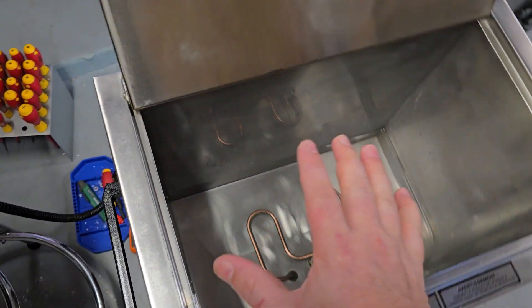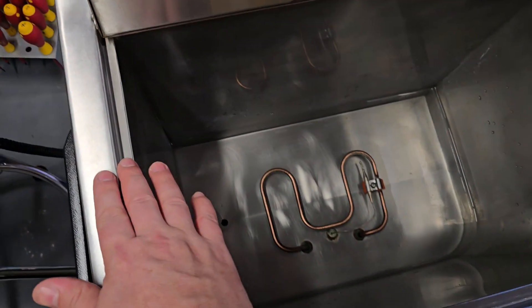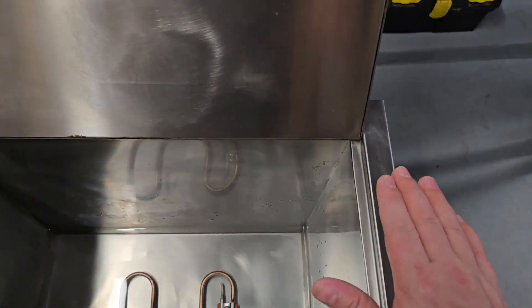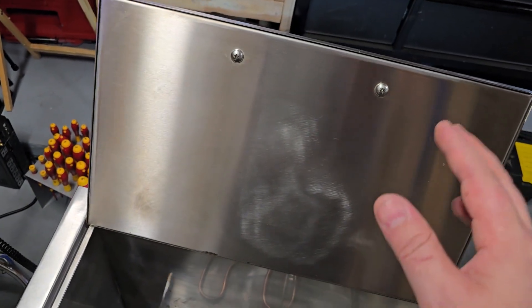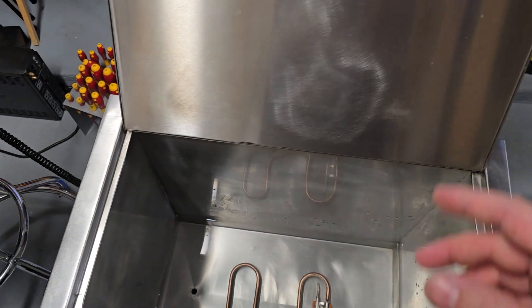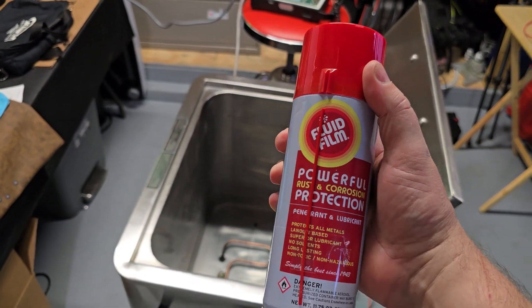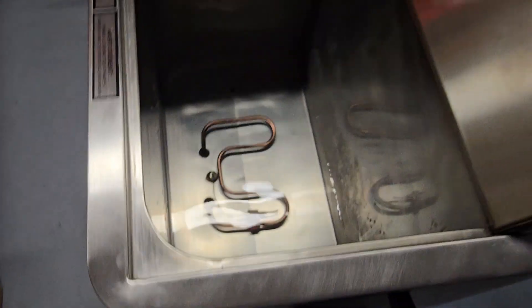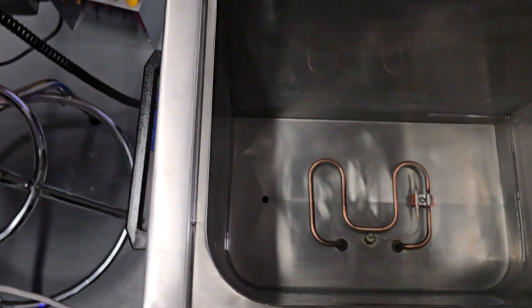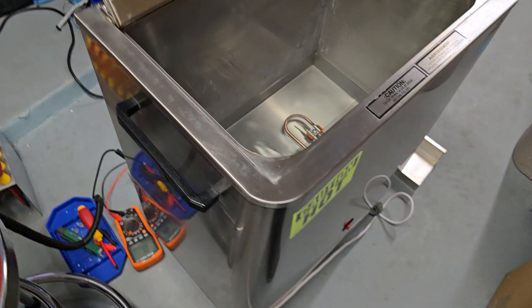So I just got through cleaning this guy. I used dishwasher detergent and a Brillo brush and I cleaned it, and then to finish it off because once you clean stainless steel it'll oxidize unfavorably. So after you clean it with anything you gotta put some sort of coating on it. And one of the coatings that I really like is I put a really thin coat and I rub it in so it's completely dry but it protects that finish. And this was all corroded before so you can see it's beautiful, it's not oily and the inside of the basin has all been cleaned out with alcohol rags and everything so it's completely sanitary in there.